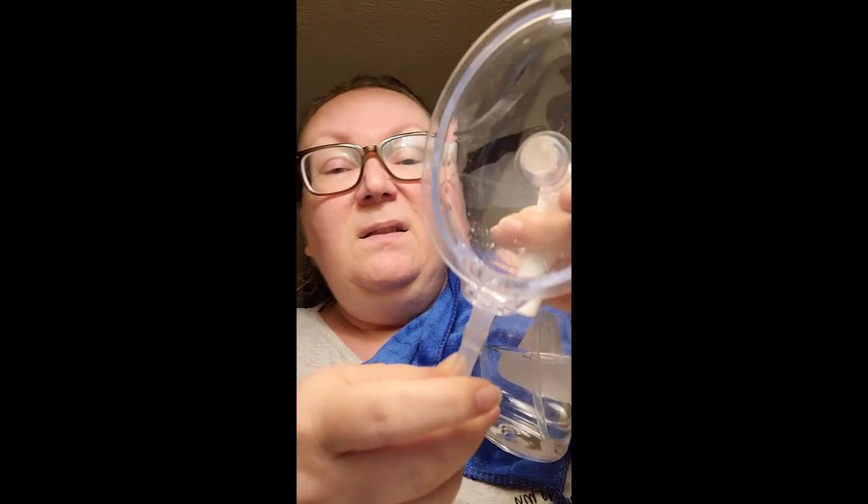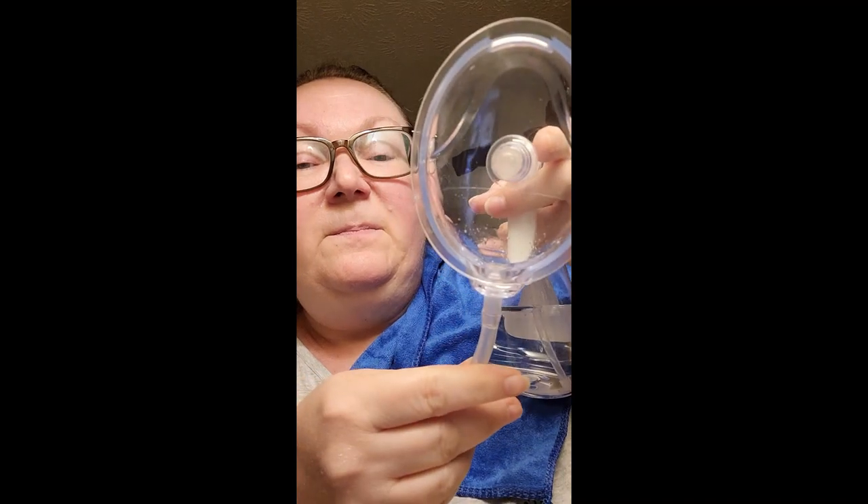I'm going to have to pause this and sit down — that's how dizzy I am. Okay, I sat down just for a minute. I hear it doing that sizzling, that bubbling in my ear — sizzling, like it's cooking in my ear. It's bubbling in my ear. So I'm going to squirt some more in there. I'm looking — I don't think I see any — I think that's just residue, not earwax, now that it's been bubbling. I'm going to try it again.